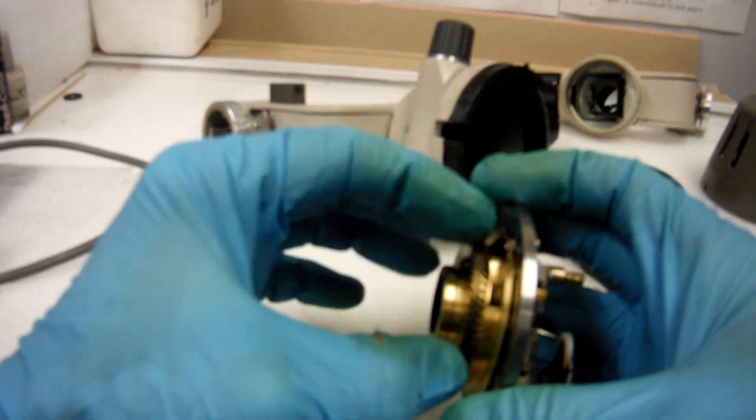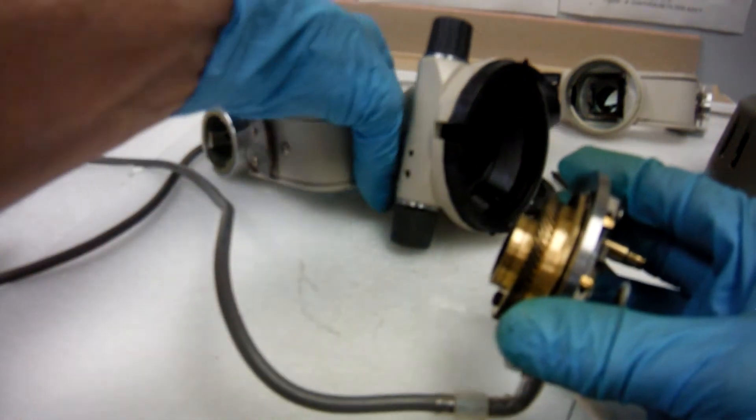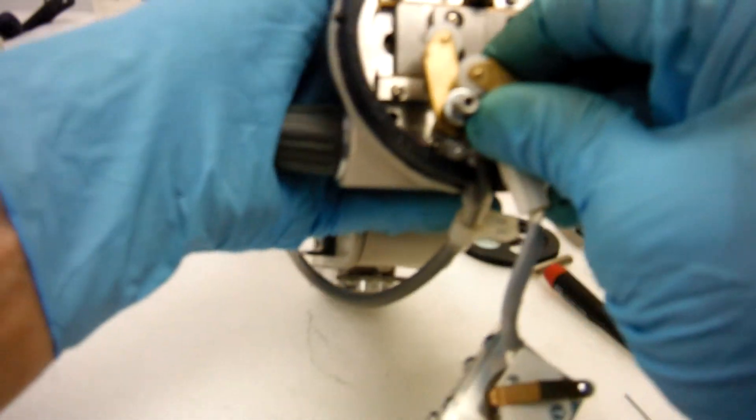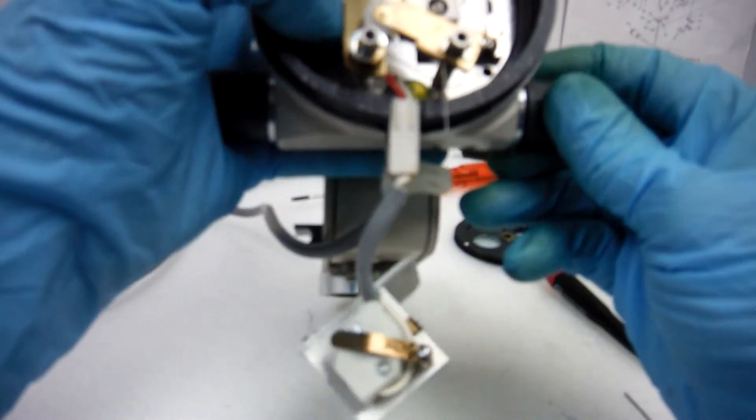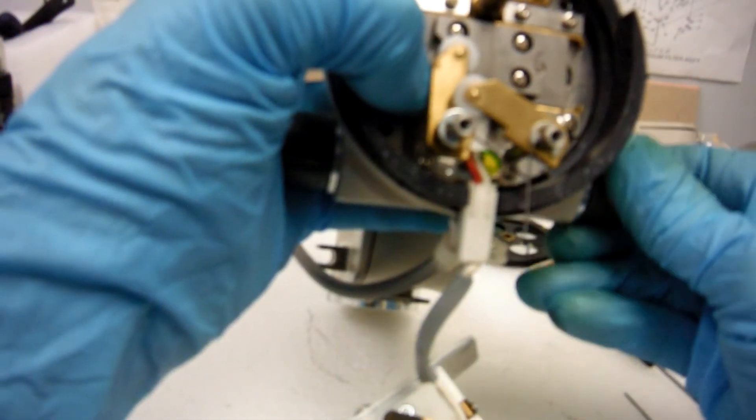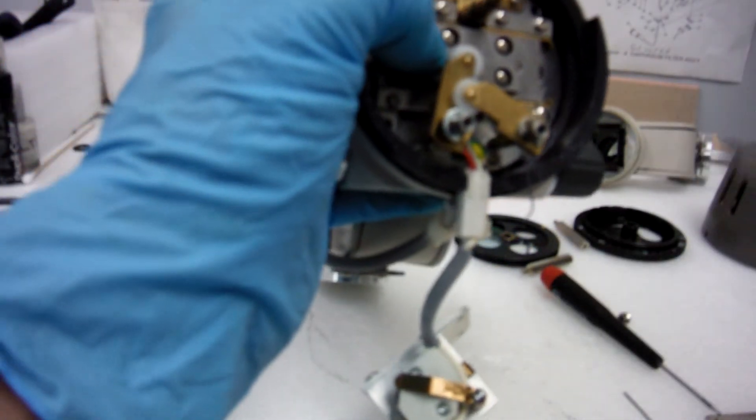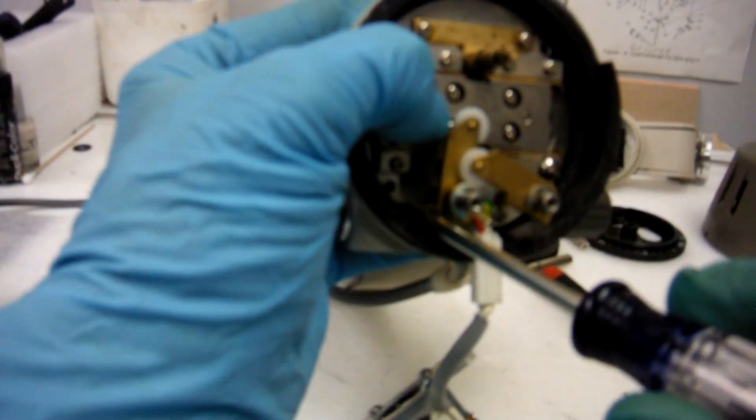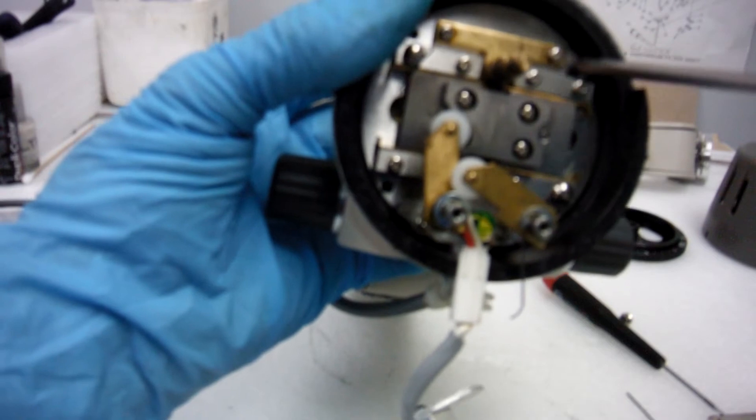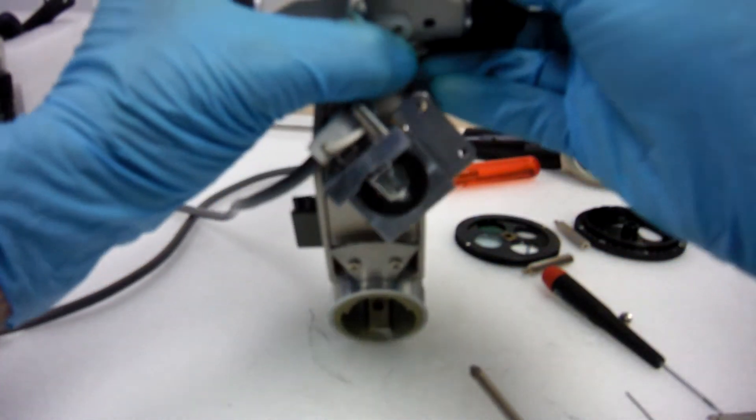A lot of this is off already because I've been messing with it. Try not to wipe off the grease from the start gear mechanism. Rotate your axle a little bit to make it fall into place. Install your four screws.